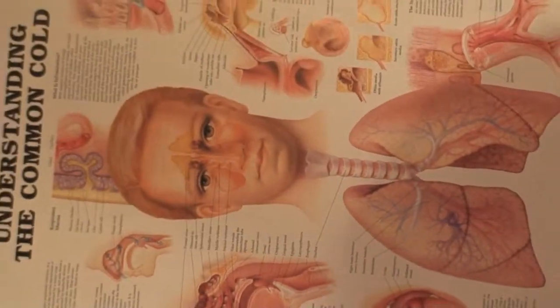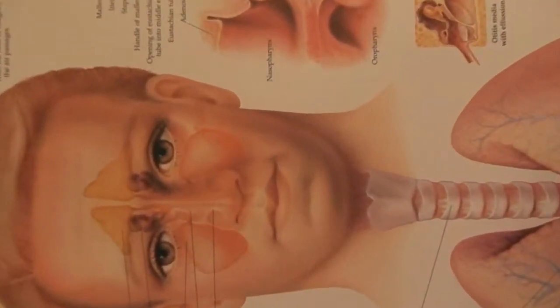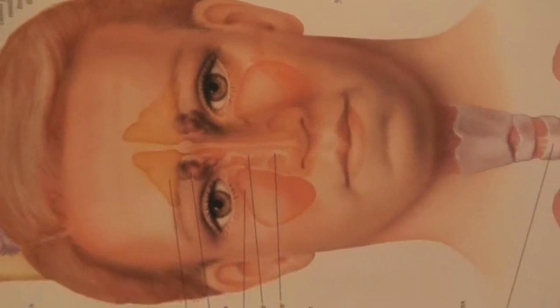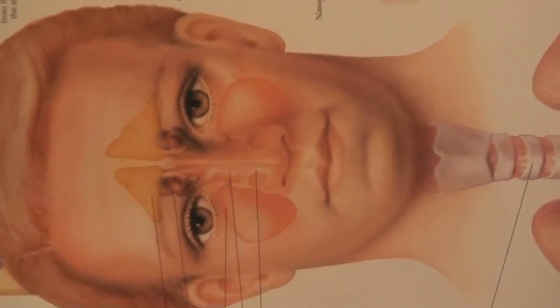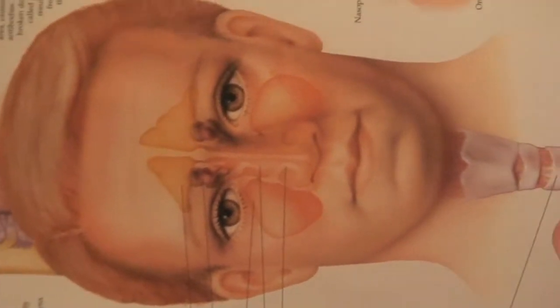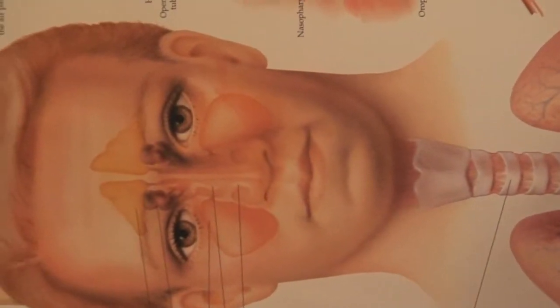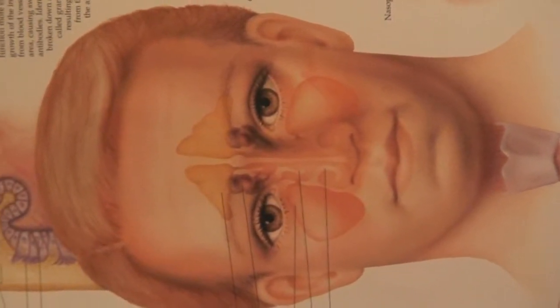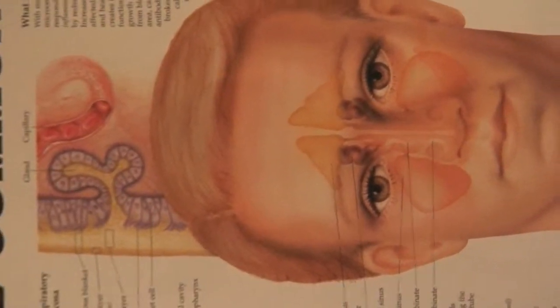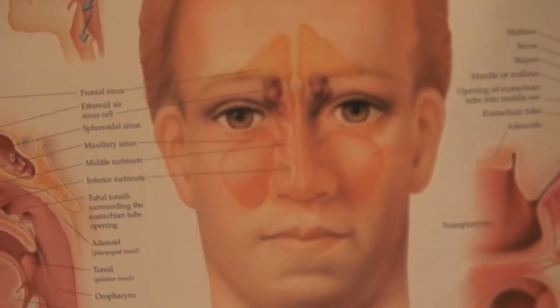So this time turning the head to the side, and this time pouring the water in the other nostril, which is now upward. So the cheek is facing downward, the ear is towards the floor, and we're filling that lower maxillary sinus with the saline solution just by tipping the tip of the neti pot into the upper nostril, pouring the water into the upper nostril. Once that lower maxillary sinus is full, we'll start getting water coming out through the lower nostril, and then we can right the head and gently blow through the nostrils as well.